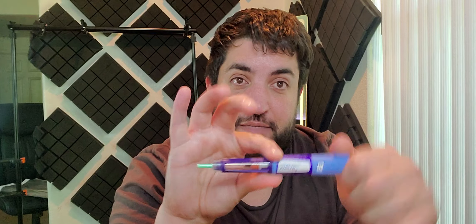What you do — and I'll walk you through — you have to actually put a needle on the top. So you open up the needle and then screw it on. Once it's screwed on, you pull this part here, which has the needle inside. When you're ready to do the injection, you pull this little cap off. And once the dial has been spun to the proper dosage that you need, then once you inject yourself — whether it be your stomach, your hip, your arm — once it's inside you, you press the button and it releases the medication. So once you push it in, it does not release the medication until you hit the button.